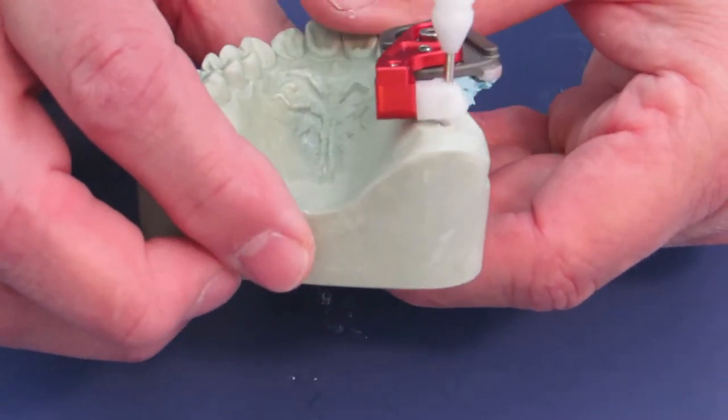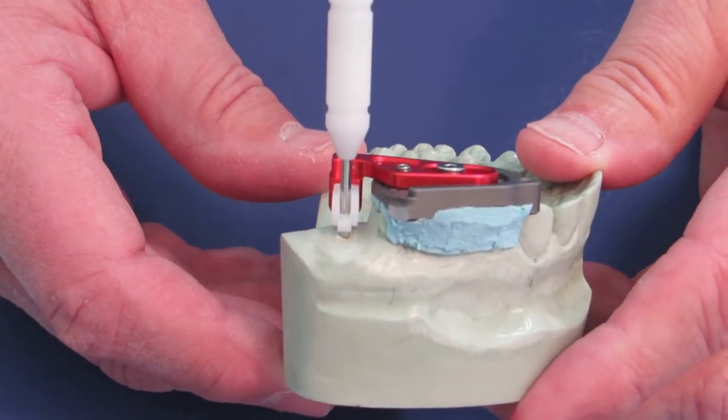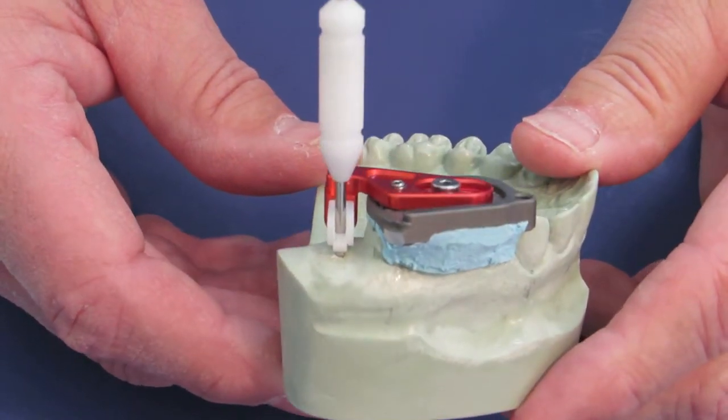Now I have a drill path that I have established that is exactly in the center of the implant site just where I want it.